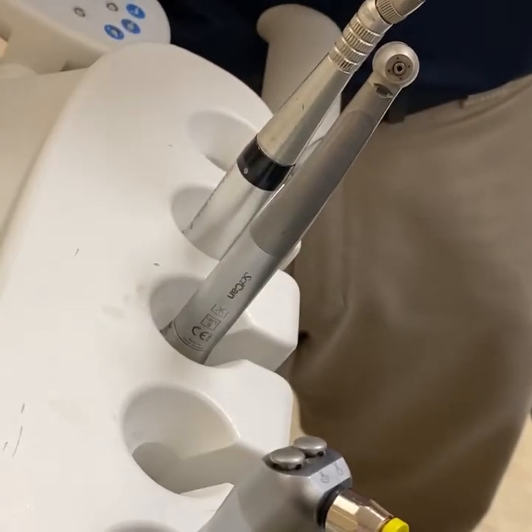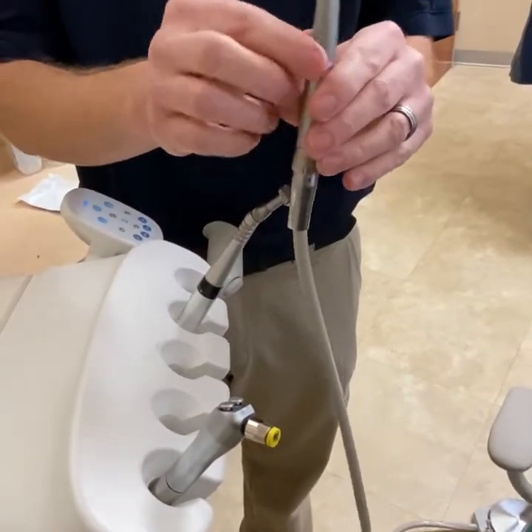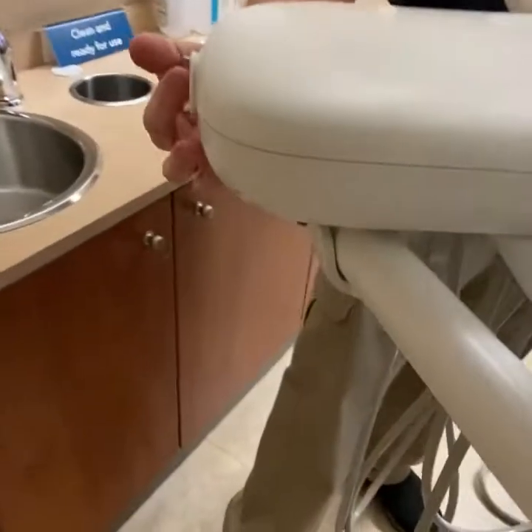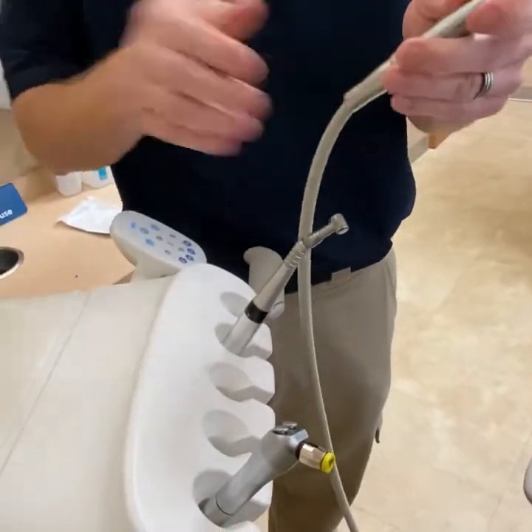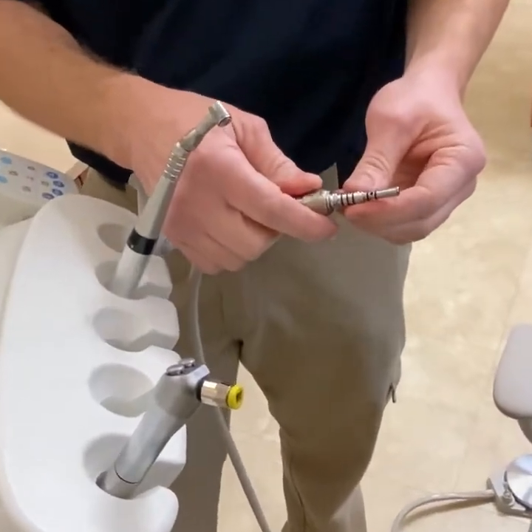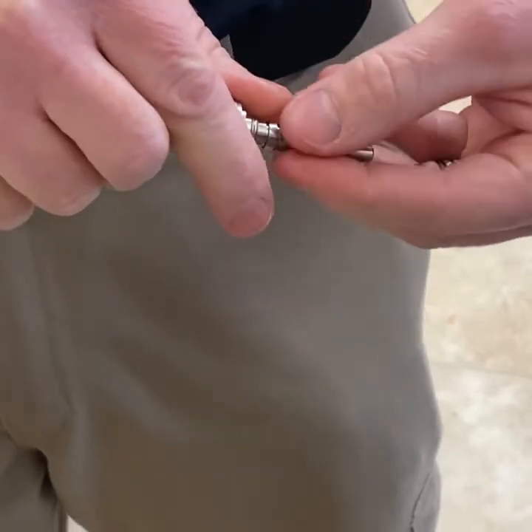Now I'm going to show you how to change the o-rings on your high-speed coupler. You want to do this if you're getting water leaking out of the handpiece, or if the o-rings are bad and water works its way through the exhaust and you start getting water dripping out of the back of the unit where the oil collector is. There are five o-rings — three larger ones and two smaller ones.